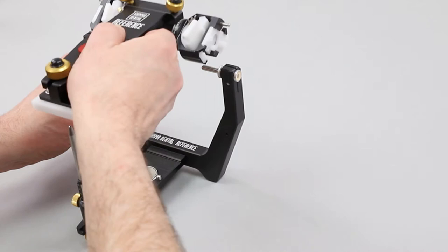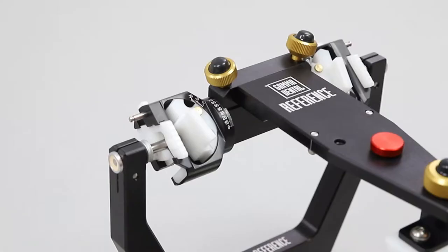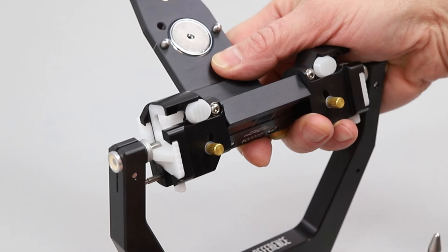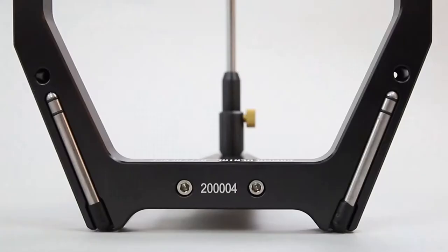The upper and lower members are connected by the condylar housings of the Reference SL. An anterior mounted incisal table unit holds the articulator in its vertical position. The articulator should be secured by closing the white sliders on the bottom of the condylar housings, so the articulator cannot fall down when lifted with open centric lock.